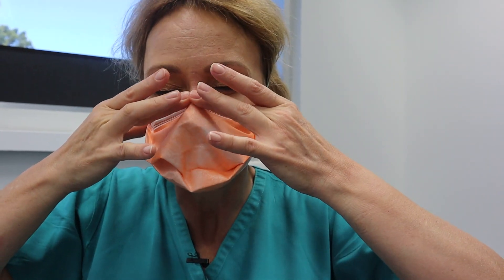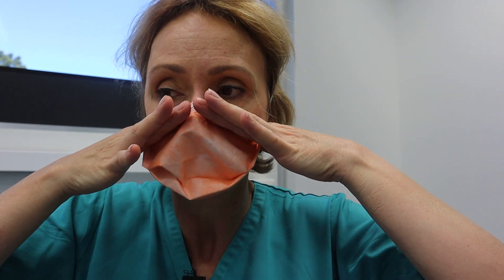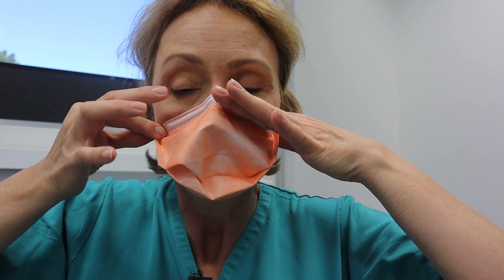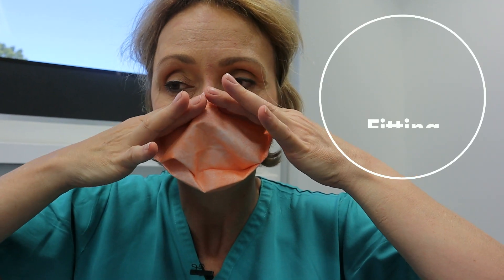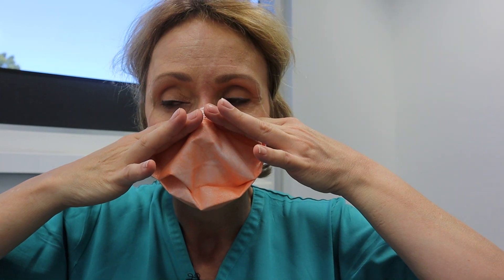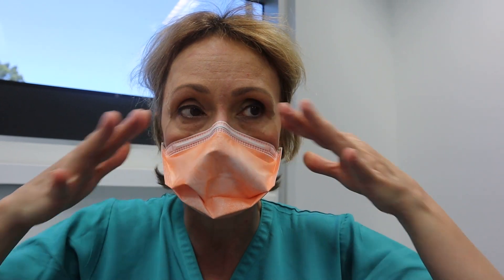I like to actually push it quite far in, but they recommend not too hard. Then with a cupping motion I fit test it — I can feel a bit of air, then the mask going in and out, and I can't feel any air leaking around it, so it's fit.